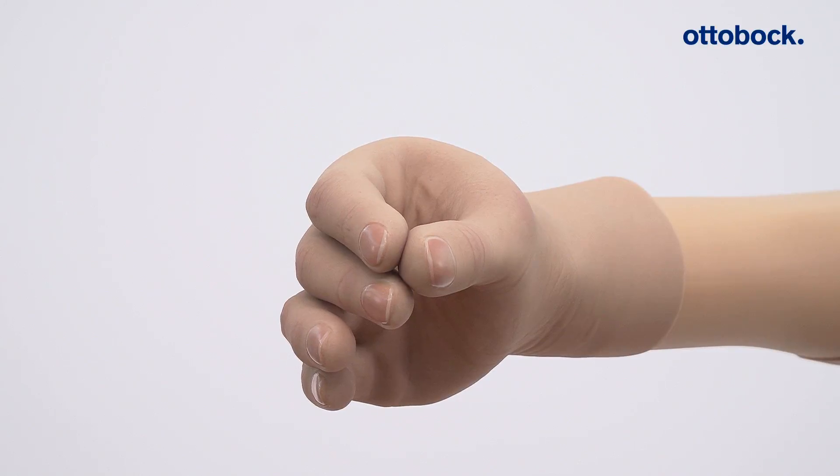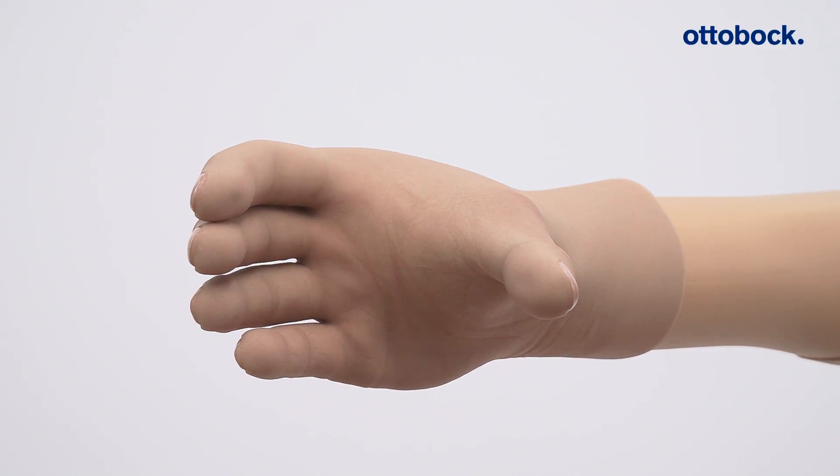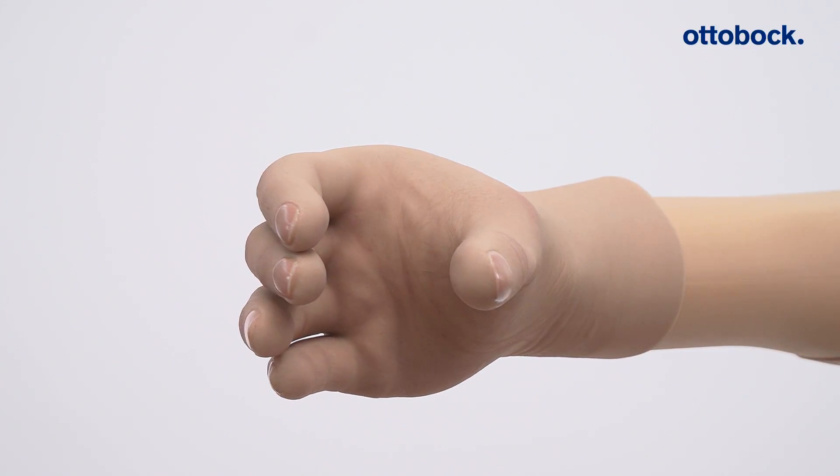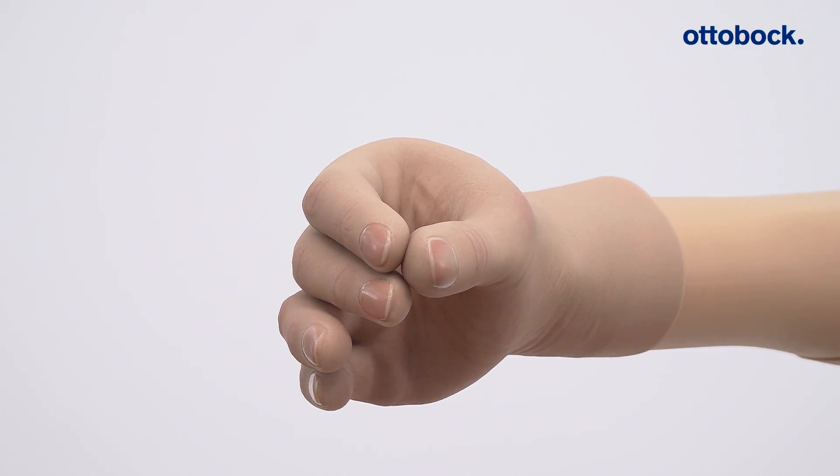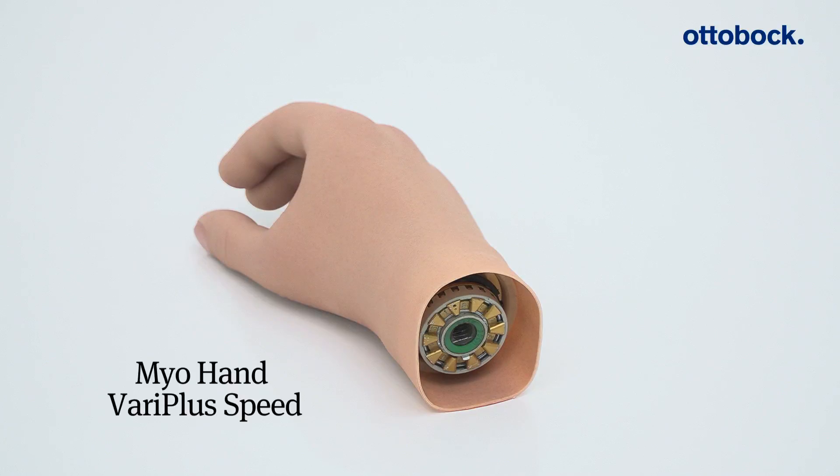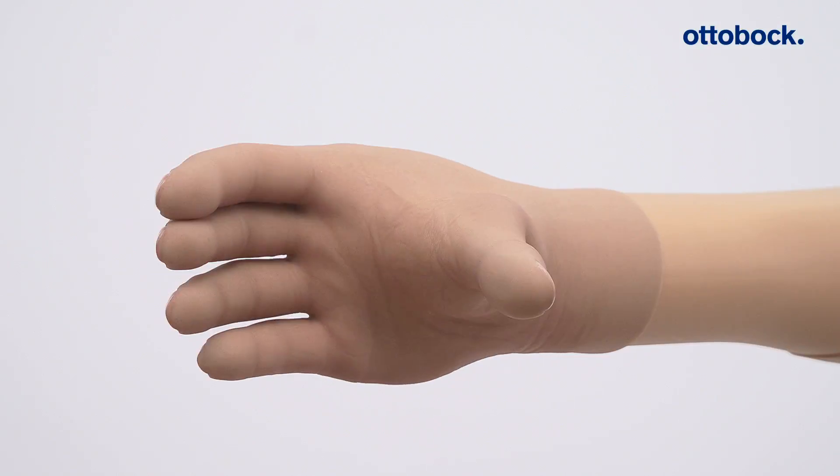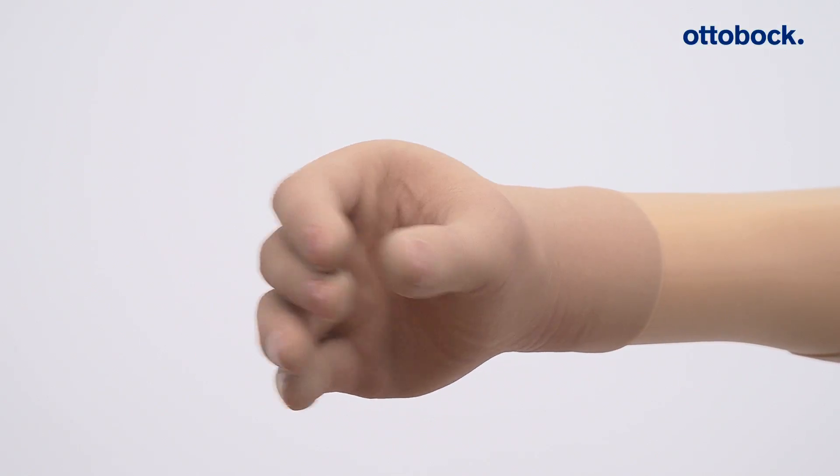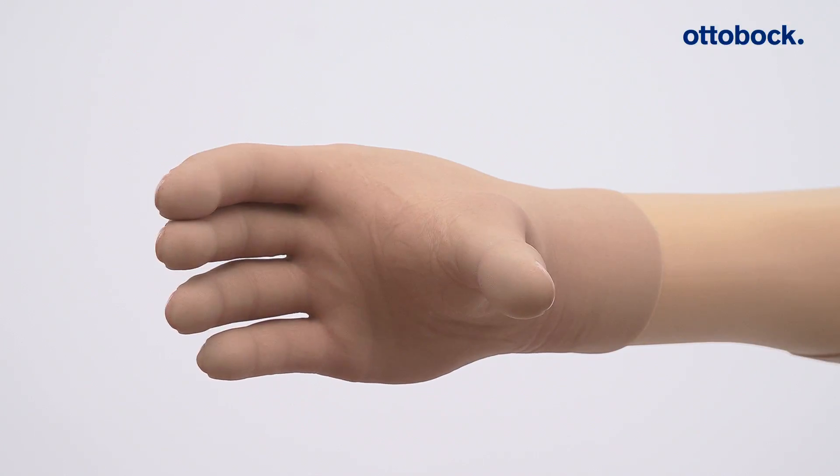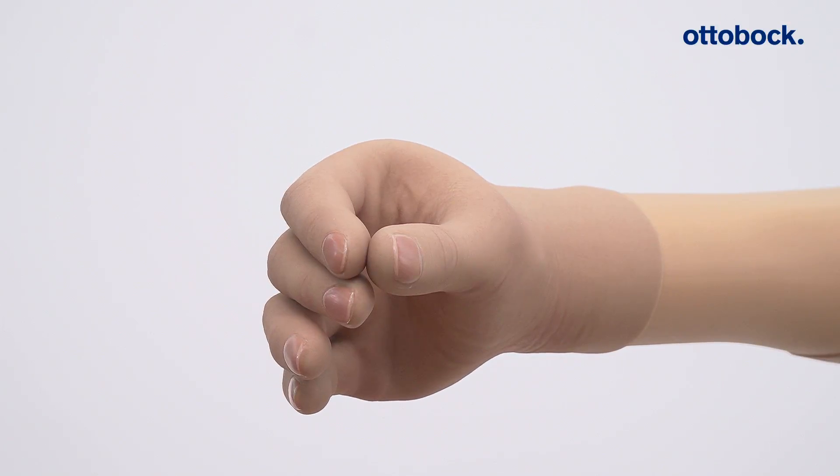The VariPlus Speed hand combines high gripping force and speed for intuitive and fast grasping. Additionally, it can be controlled easily and with precision.